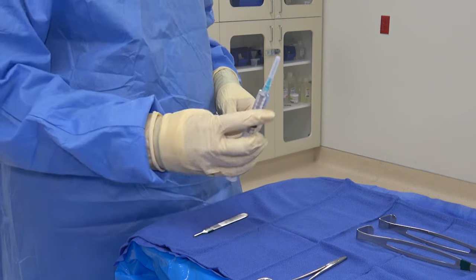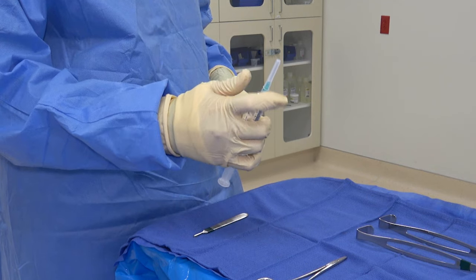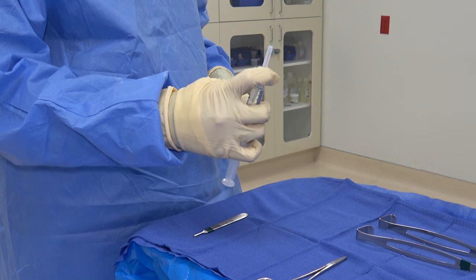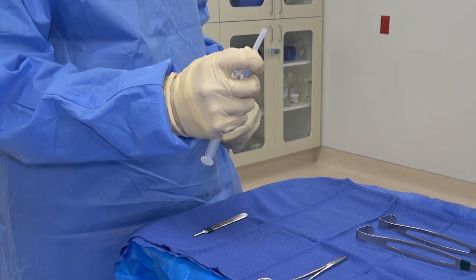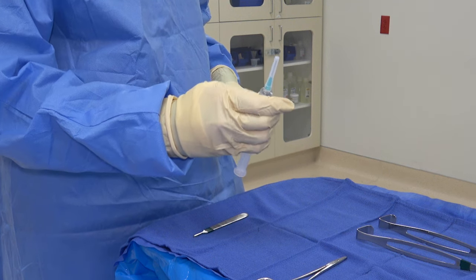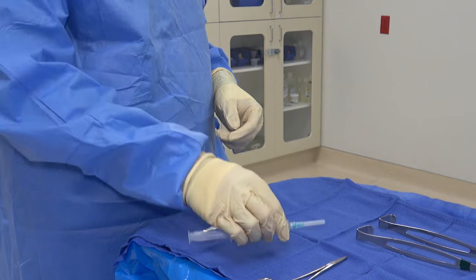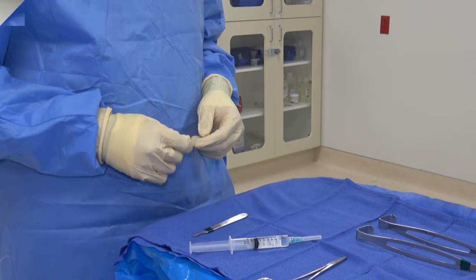Option two: with the cap laying on your mayo stand, scoop the cap onto the end of your needle, then use the fingers of the same hand — not your other hand — to snap the cap in place. This way your fingers are never near the tip of the needle.